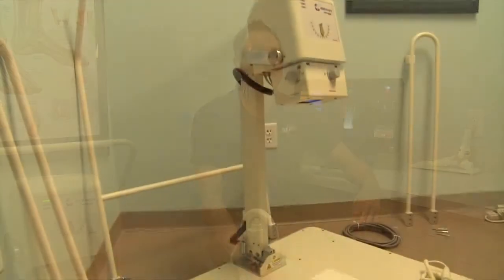Hi, I'm Blaise Gerstung and welcome to 2020 Imaging. Today we're going to go through the installation and calibration of the PXS710D.